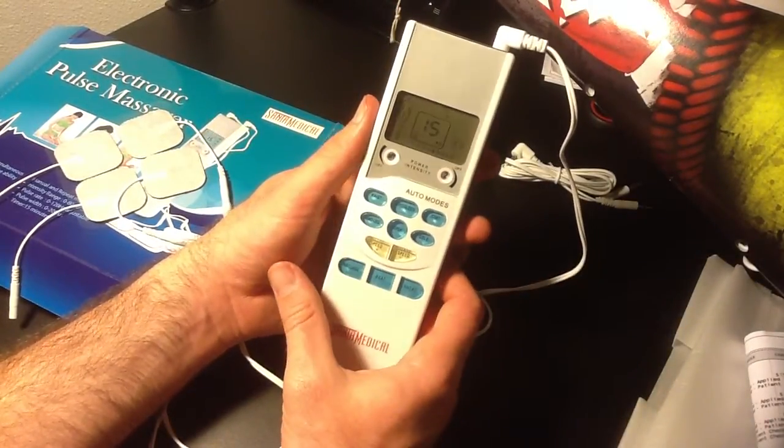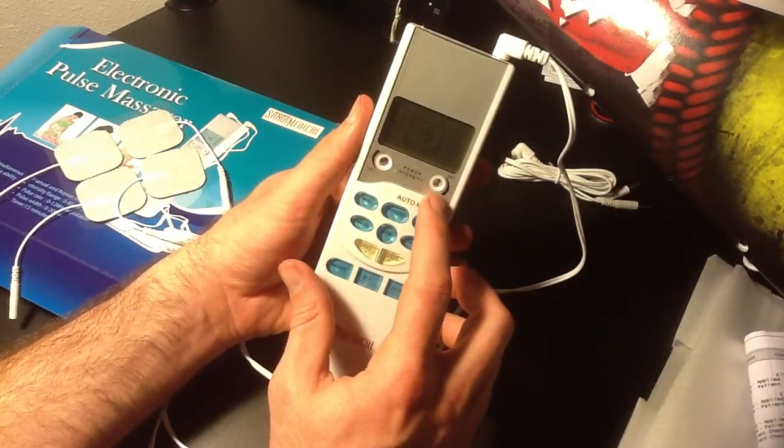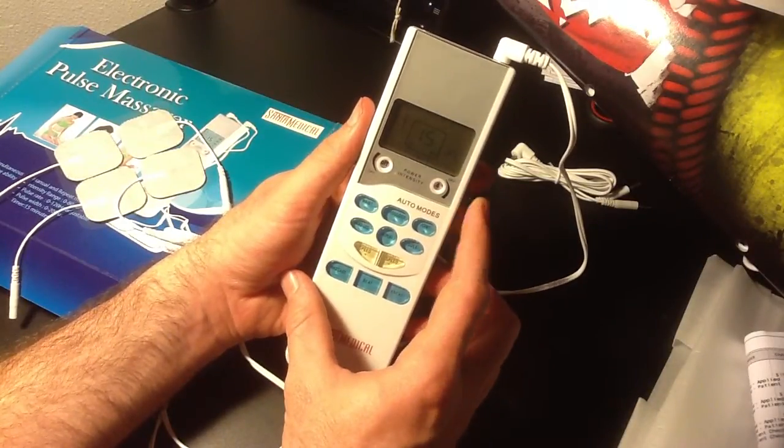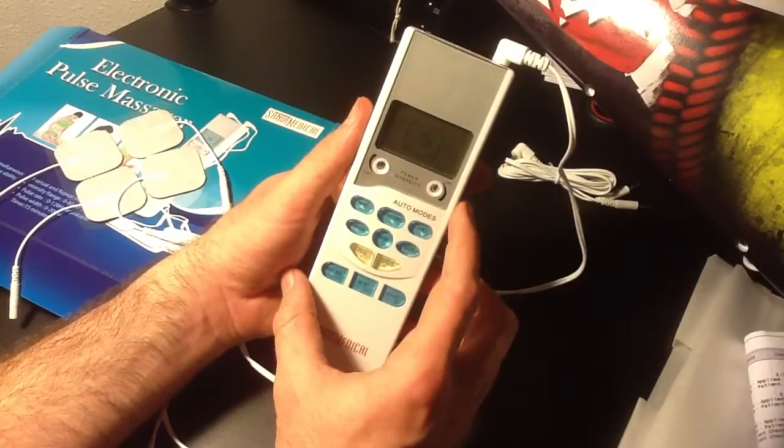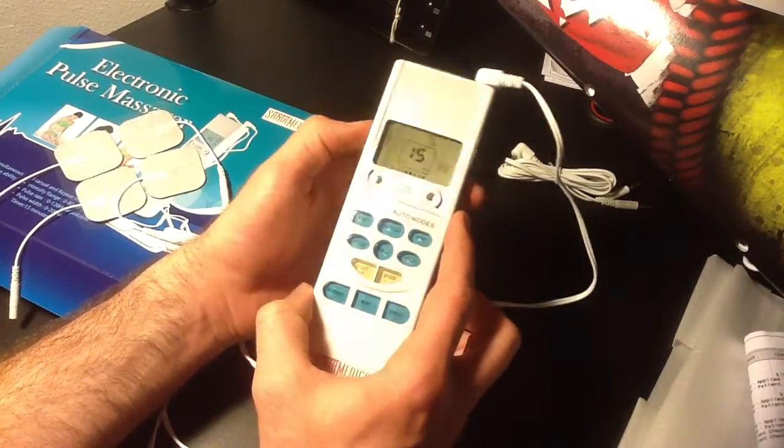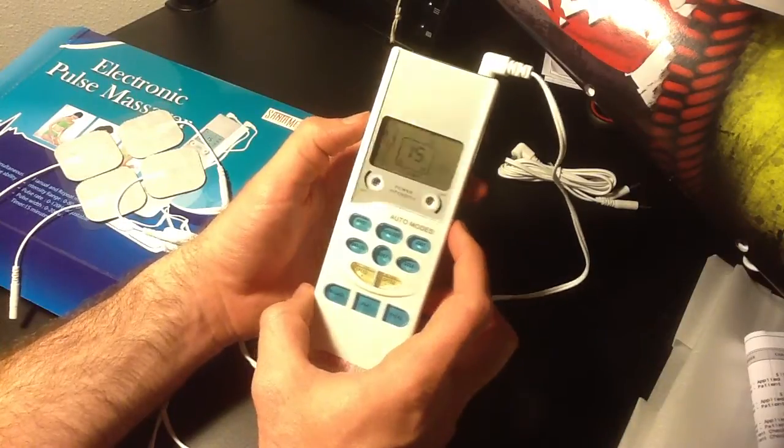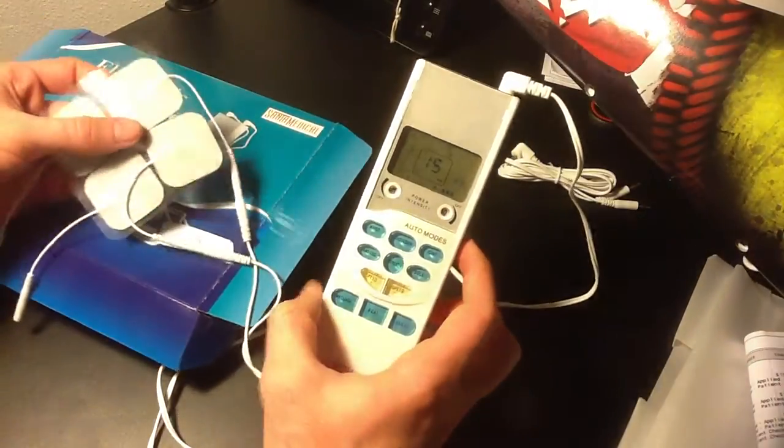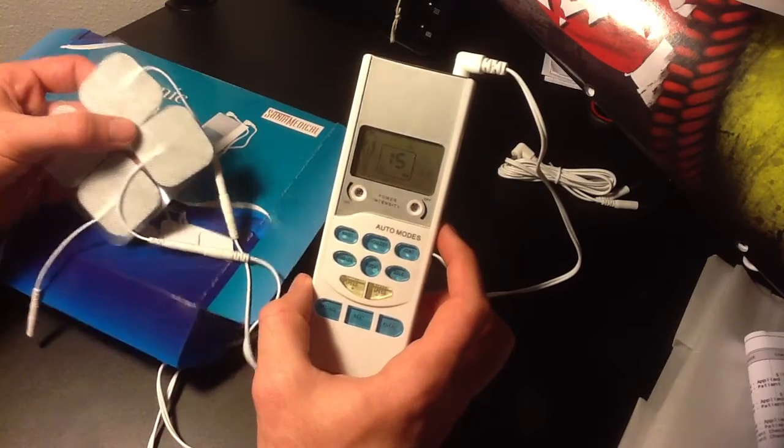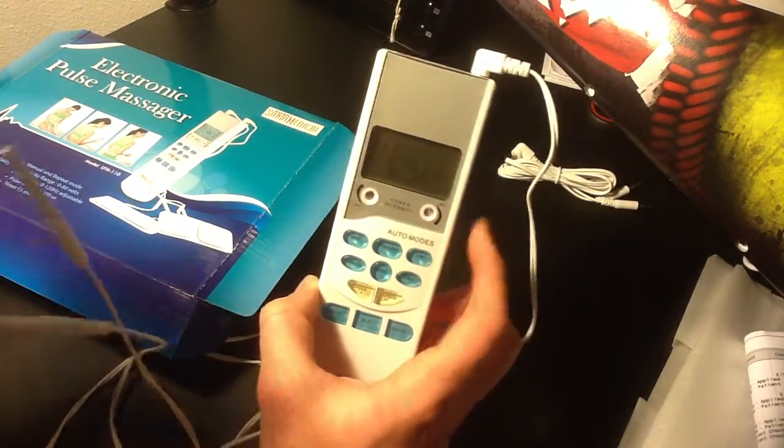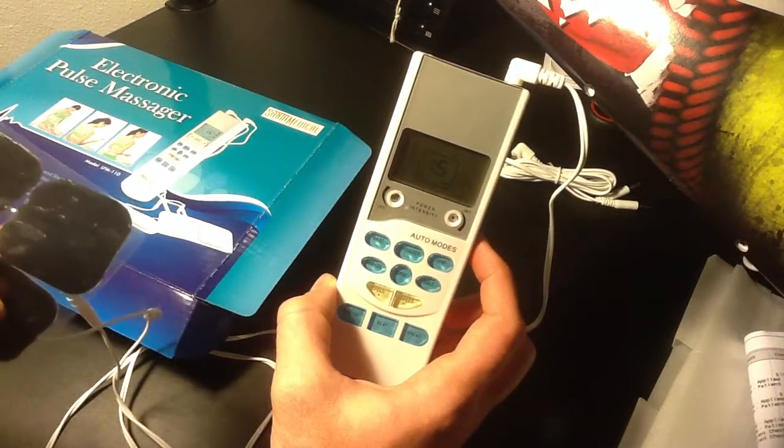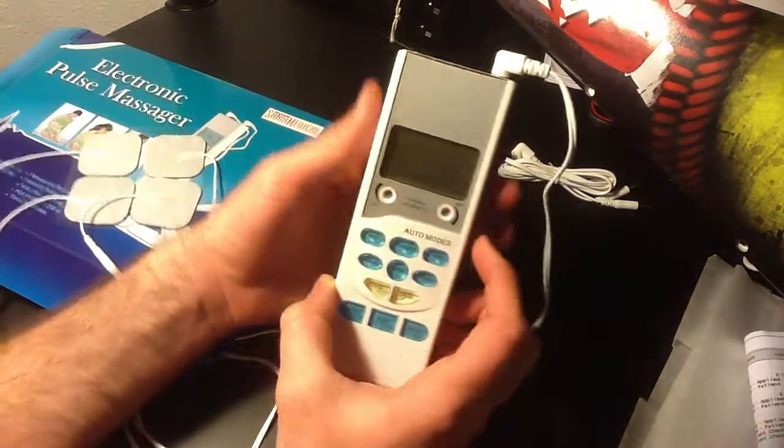Even though I'm not using it right now, this is a strong device. I have a hard time getting past four for my back. Anything else is quite painful. In fact, I'm going to turn that off. It's making a little bit of a sizzle. It's a strong little unit.